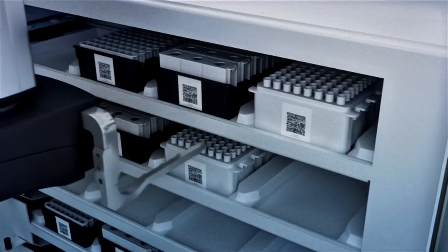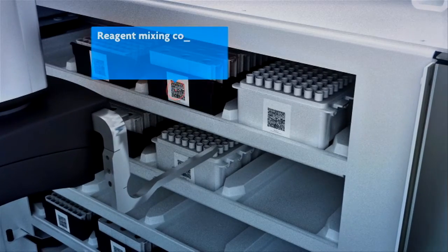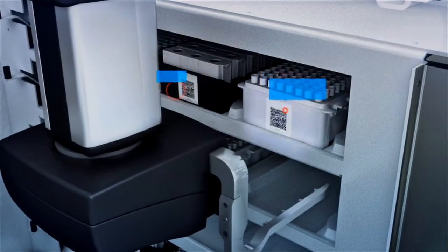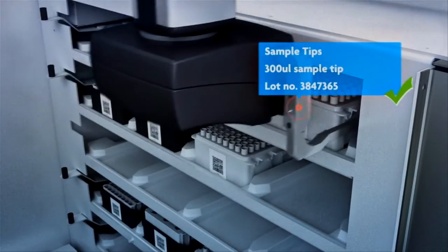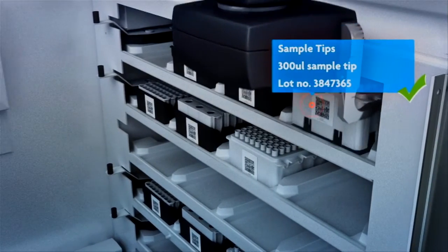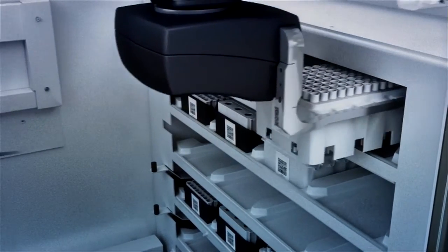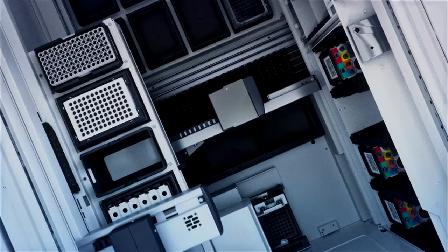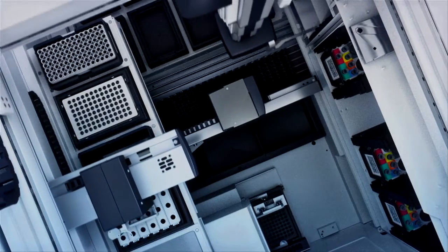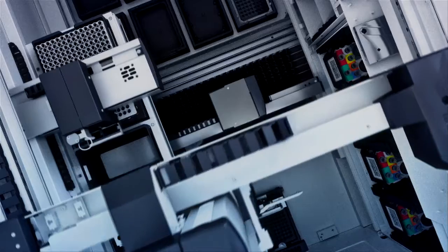In the end, this will save you much more time and money. Exceptional storage capacity removes the need to replenish consumables and reagents during a run. Save time. Advanced automation allows you to walk away and do something else.